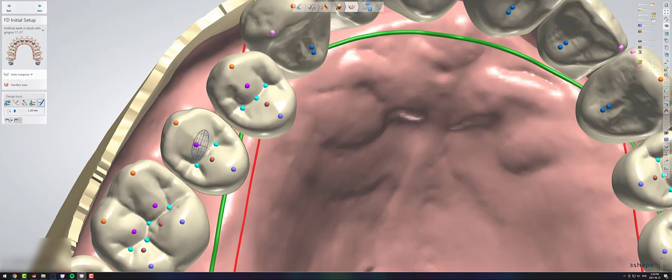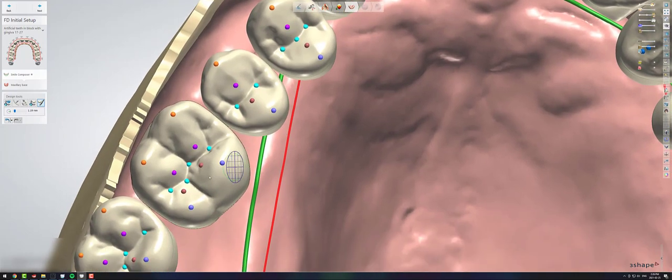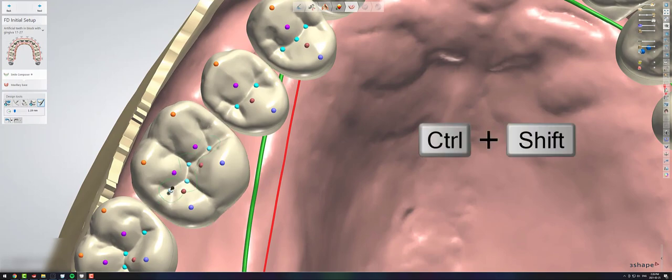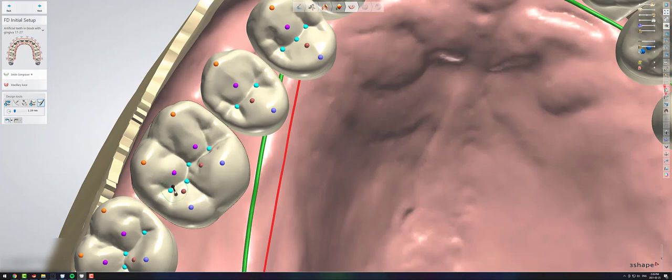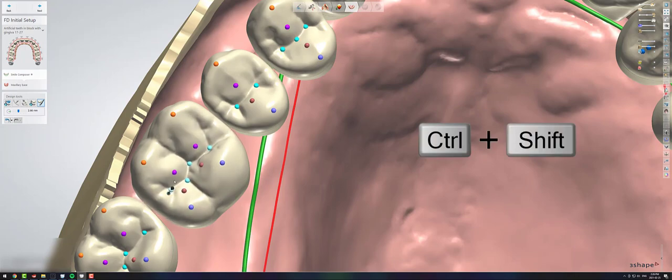And also work on these little buttons that pop up. So if you click on one of the buttons and hold control and shift, you can affect all of the buttons that are the same color at the same time. If you want to hold shift and slide your roller and make it a little bit larger, you can affect a larger area. Or if you want to make it smaller, you can do that too.